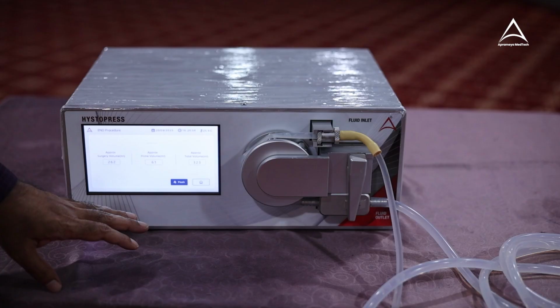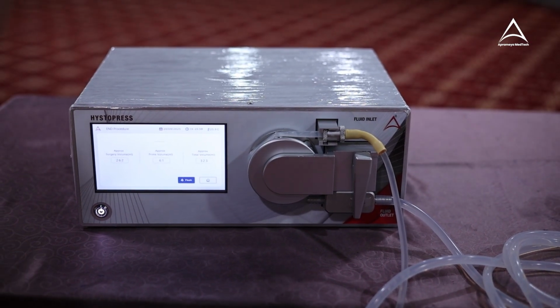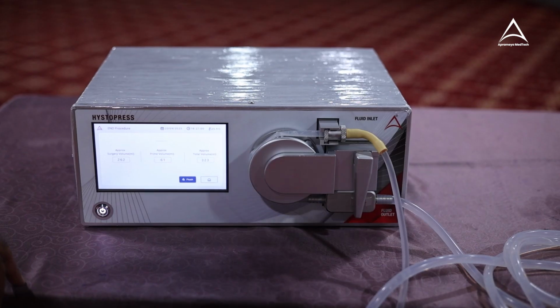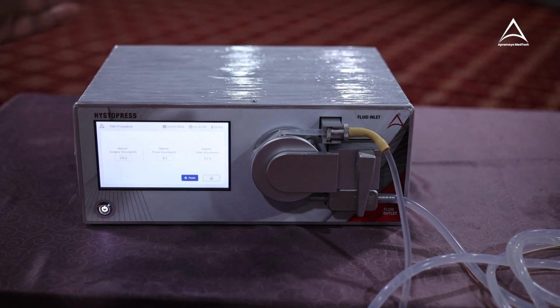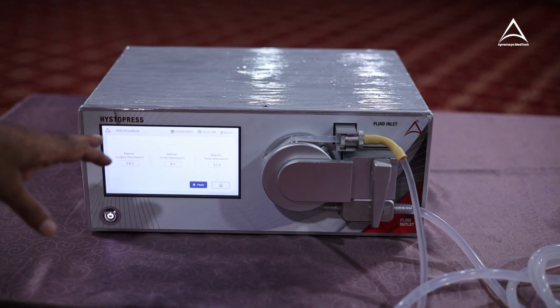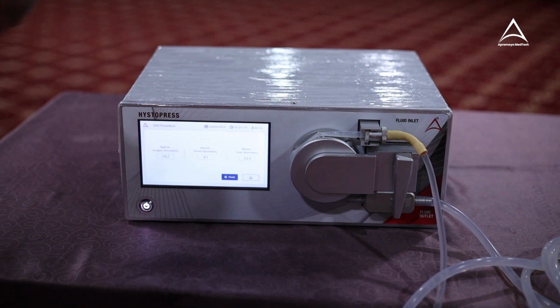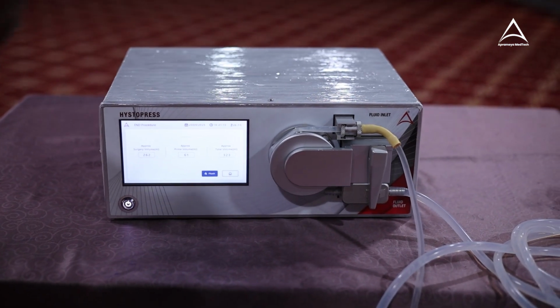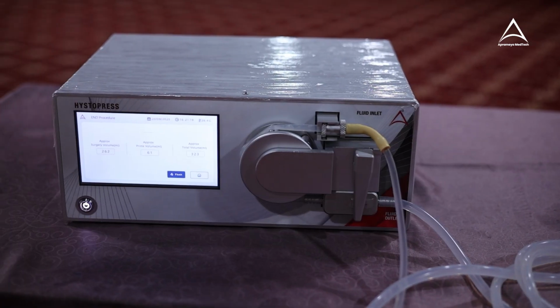Why this data is important? Because you can cross check it with your data. You can cross check it with the nurse who is taking all the details on the whiteboard. You can cross check and you can calculate the deficit amount of the volume used. So that deficit amount is very important parameter to know what is the fluid absorption happened in the case.